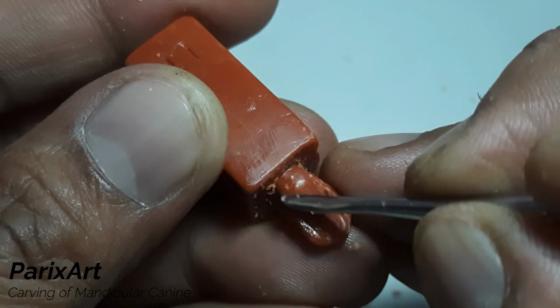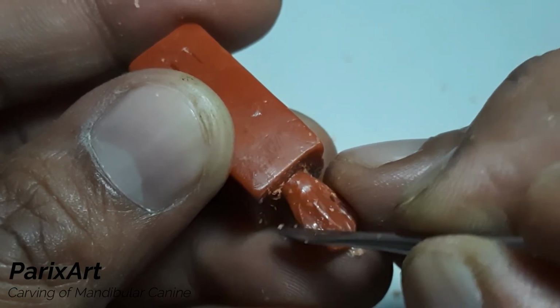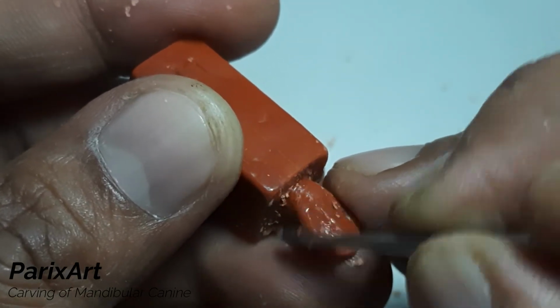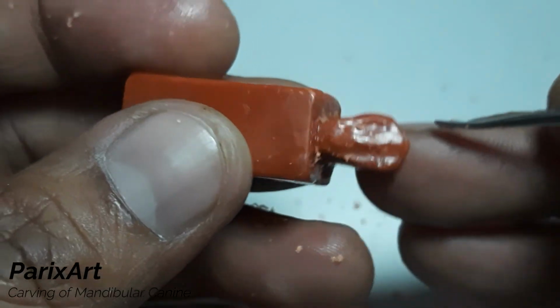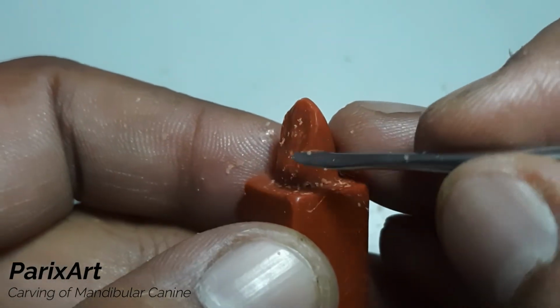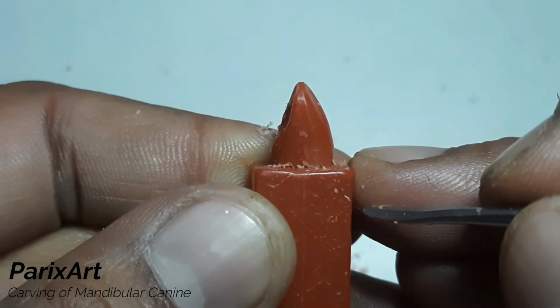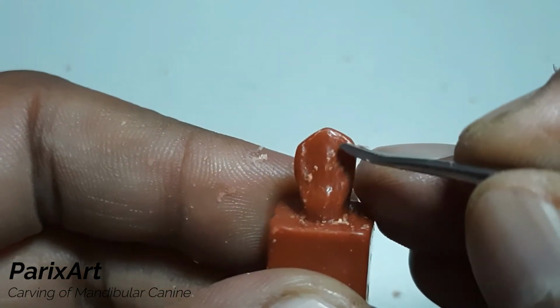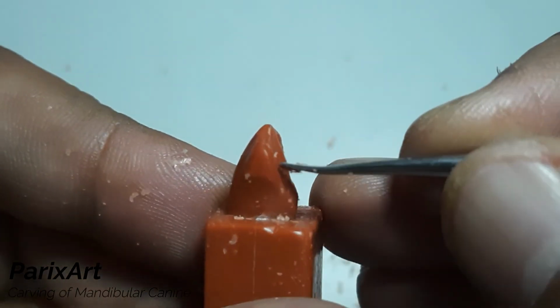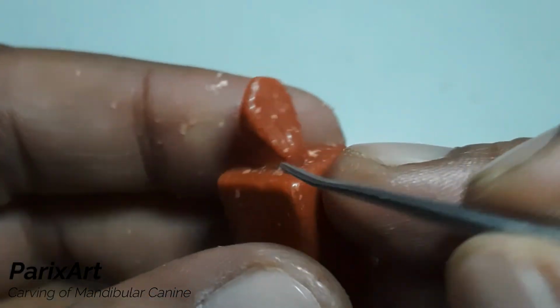Now just blend the features, blend it with the contour of the crown. See the shape on the distal? We'll blend it with the contour at the cervical first.